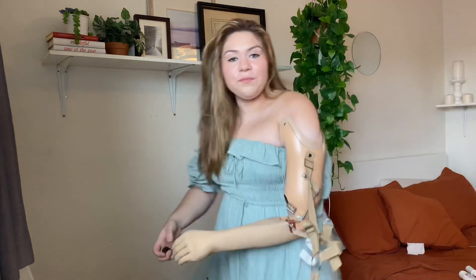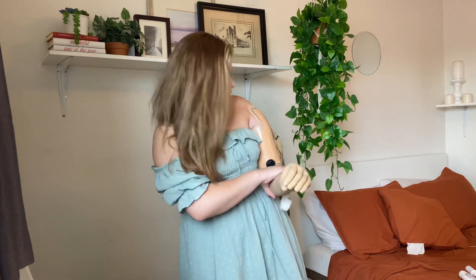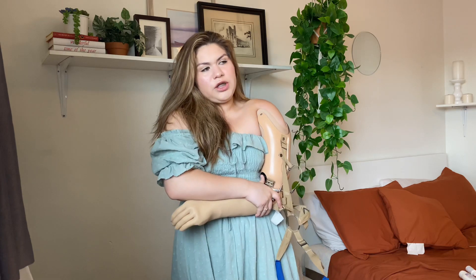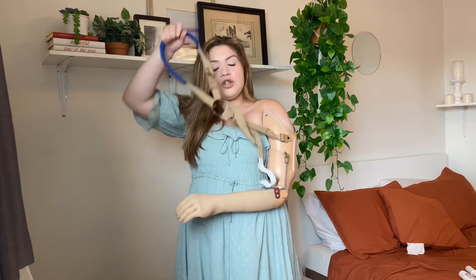Honestly, it's a whole workout — I'm all sweating. My arm has to be all the way down here. So let me grab that real quick. This is the part I was talking about — it looks like this, and I have to make sure I put it — let me screw it on here. After I screw it, I need to not have too much air in here just so my arm can go all the way down.